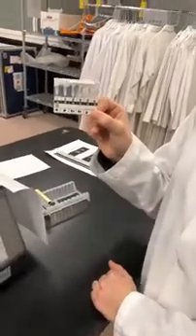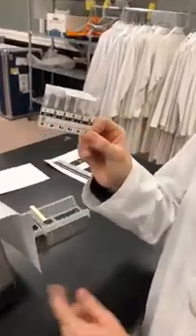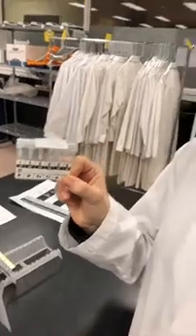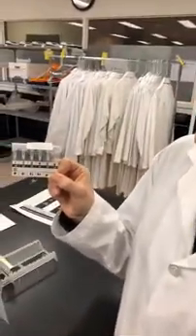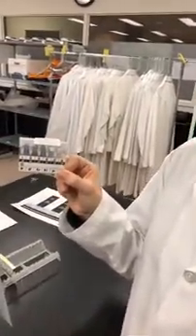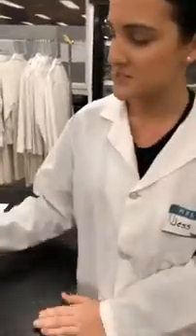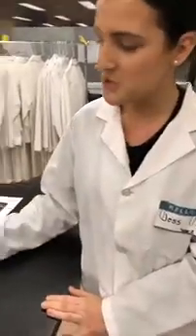Another example is just over here where we have the MTS card. This is similar to what we just did in the tube, but it's a more automated method — it would be incubated and spun in the MTS machine over here, and we would be able to read the card and get a result that way. Those are two of the examples of what we do in transfusion science.